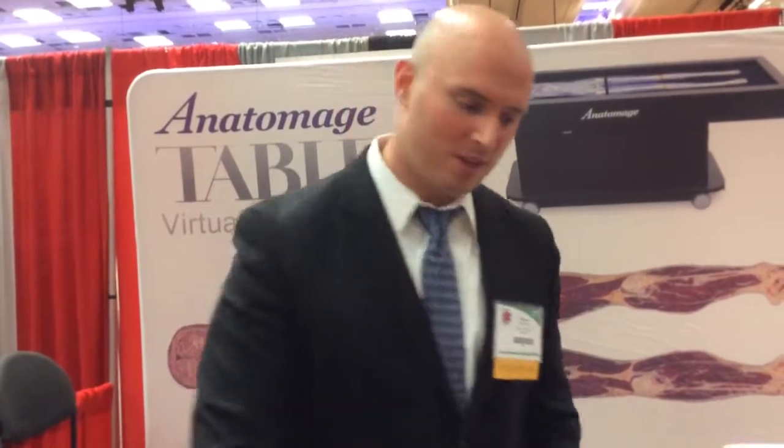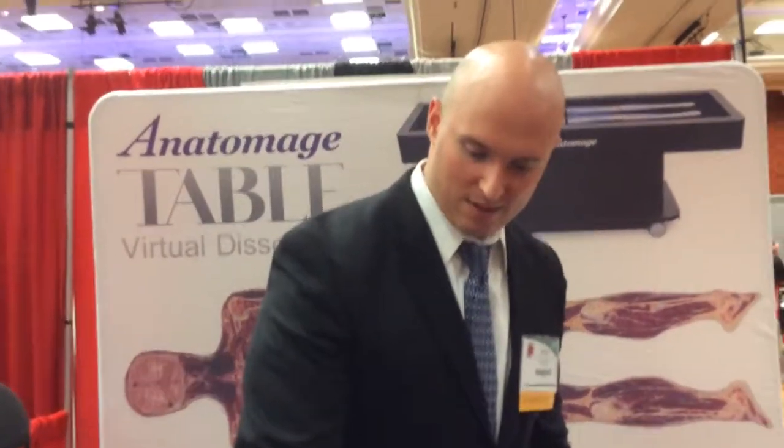Now I could see this would be really interesting if you could somehow flip this table to face the class if you were teaching anatomy. So you can hook it up to projectors. Yeah. We have display ports here, so if you wanted to do that, you can do that. You can certainly hook it up to other sources. And that would look on the screen just the way it looks on the table here.